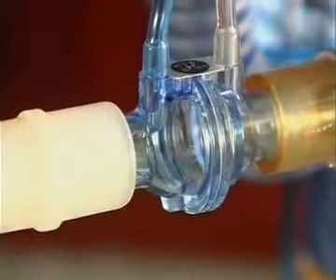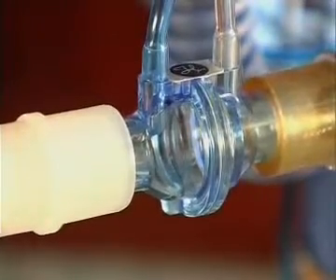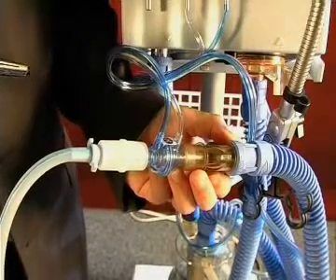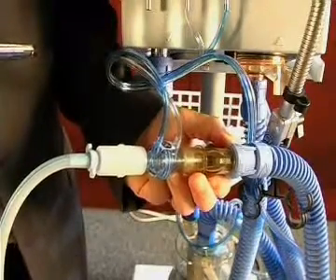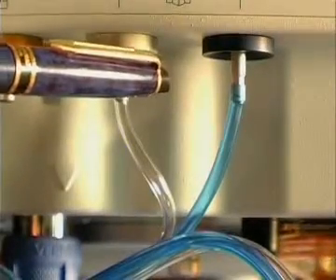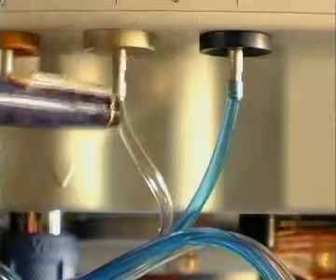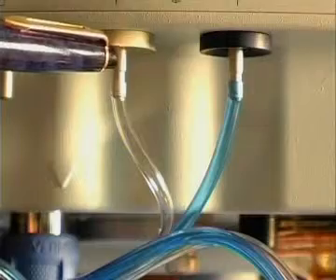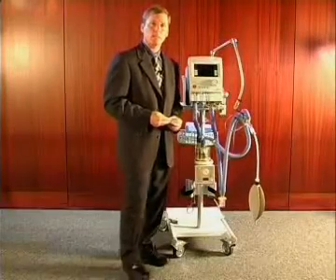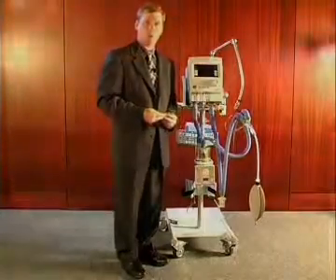This is where we make all of our measurements of flow, pressure, and volume at the proximal airway. It is important that when you place the flow sensor in the airway, the blue line be facing the patient connection. The blue line will connect to the blue connector, and the transparent line will hook to the silver connector back at the machine. The machine does know the direction the flow sensor is placed, and it will give an indication to turn the flow sensor if it happens to be placed in the wrong direction.